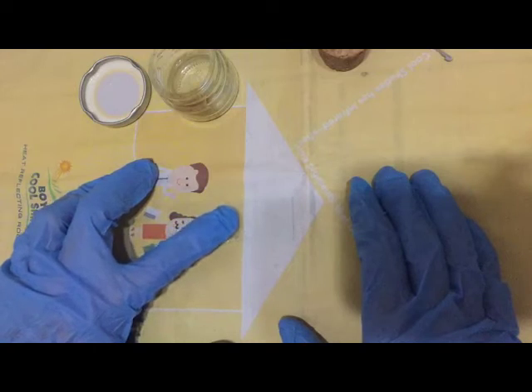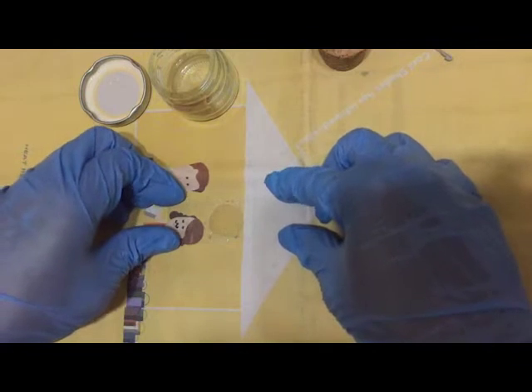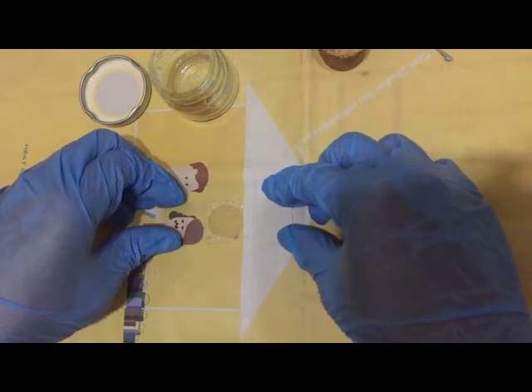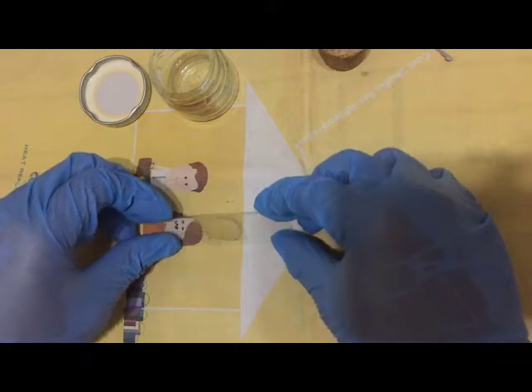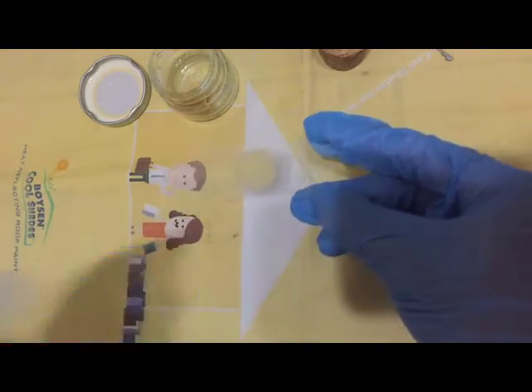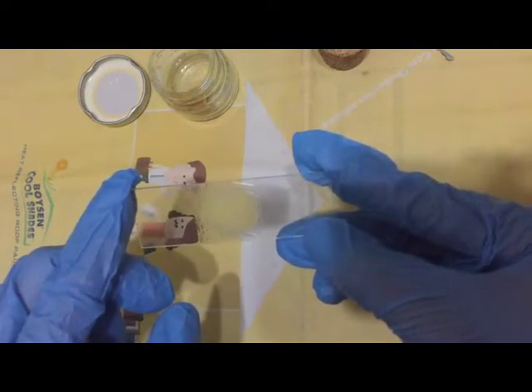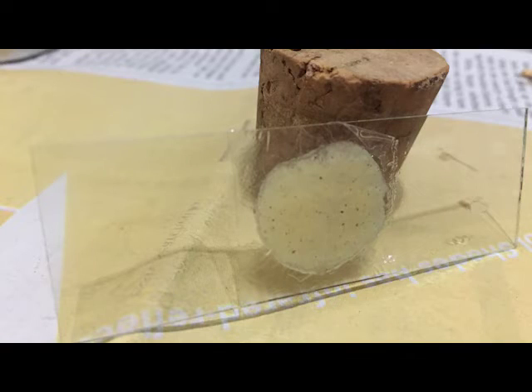When you lift up the glass slide, make sure that you do this slowly because the glycerin might stick into the newspaper, and if you lift it up abruptly, it might dislodge from the glass slide. So that's how you prepare your Modified Kato Thick stool exam.